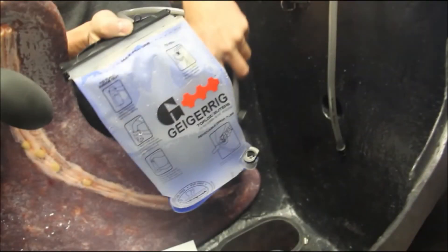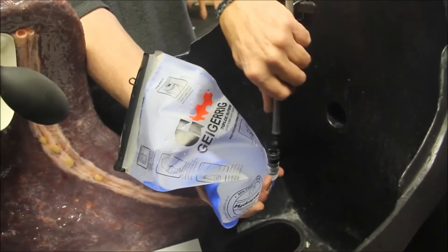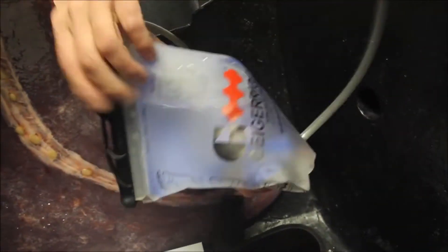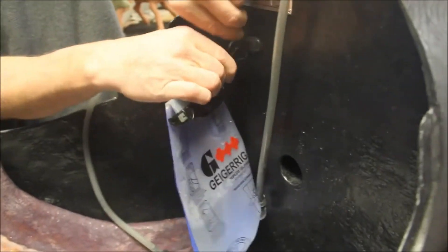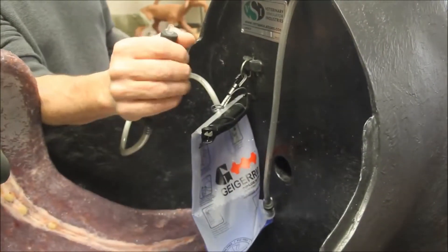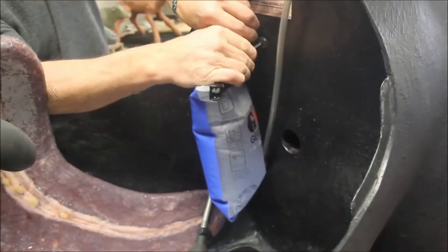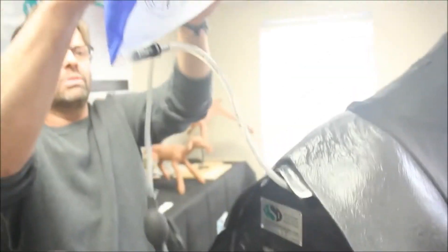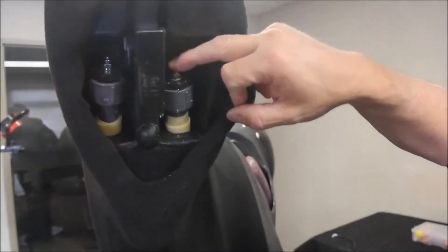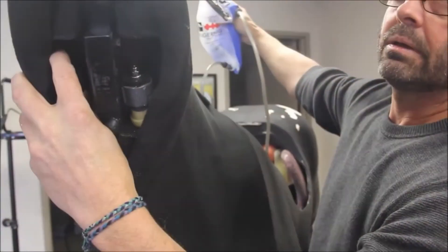The jugular veins are pressurized with the provided fluid bag and do not need gravity to function. Attach the hose from the neck to the bag and inflate it with the attached pump. On the initial setup, lift the bag while depressing the valves at the top of the horse neck until some fluid is released. Then reclip the bag inside the horse.